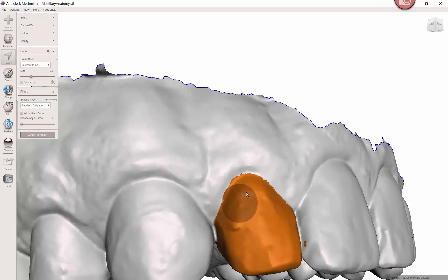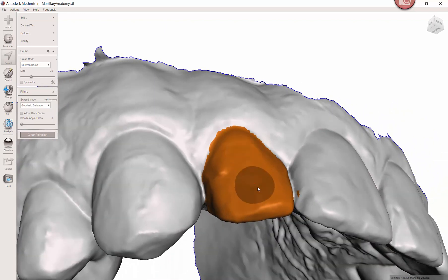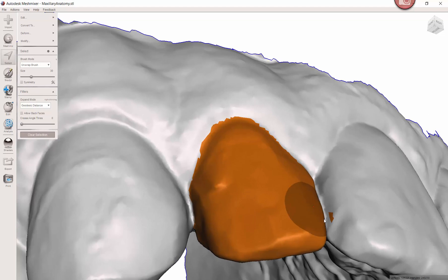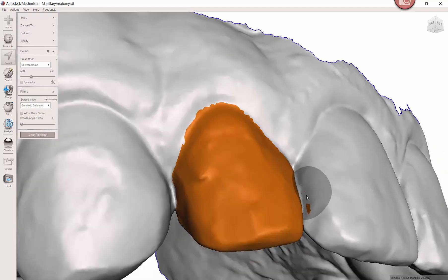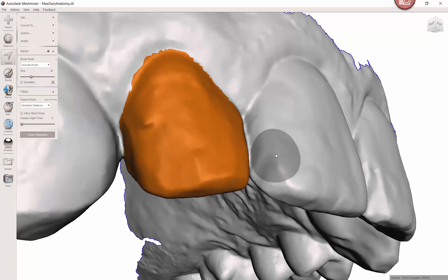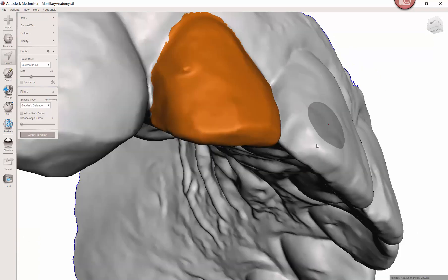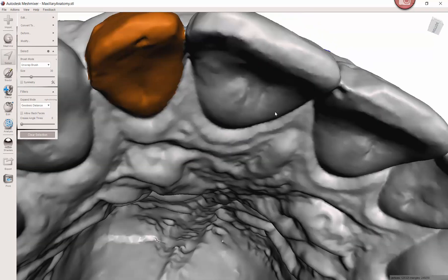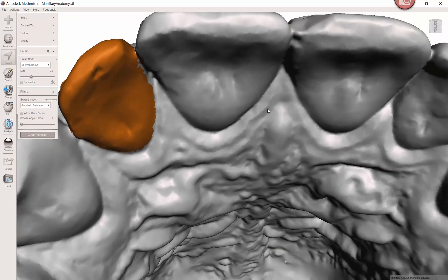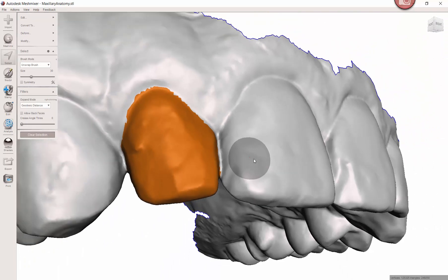This looks pretty good to me. This little guy down here, this little area over here I don't want, so I'm going to hold the shift button and click to undo. If I highlighted all this, once again shift I can deselect. I feel like I've got a pretty good area and most people would just proceed with the extraction now.